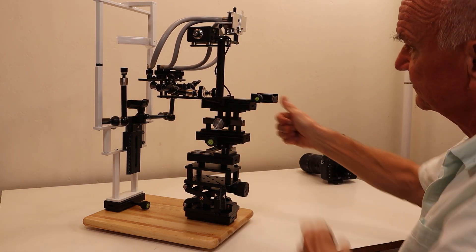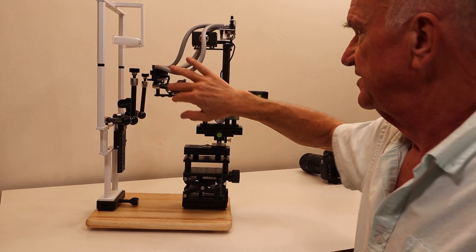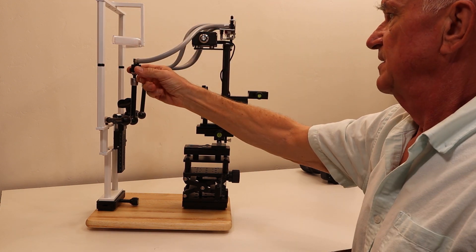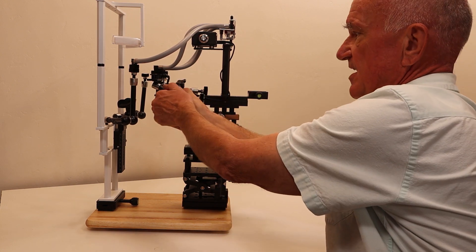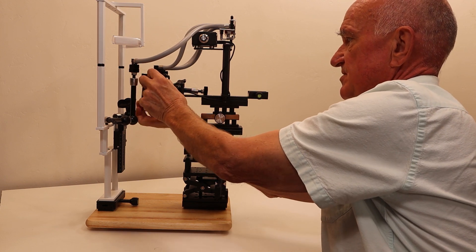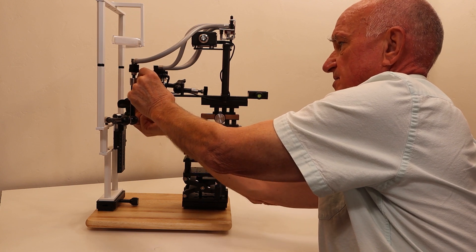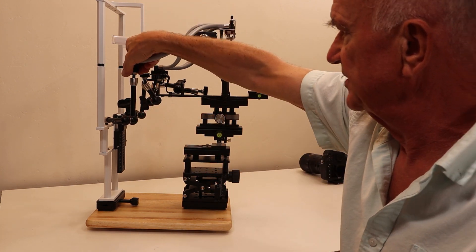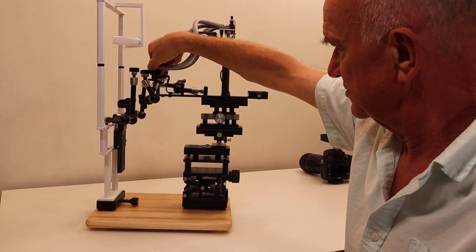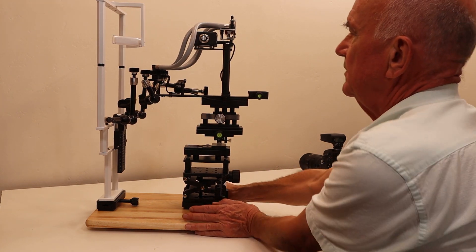This is the complete illuminator with chin rest. The newest design allows you to move the light guide to different positions. This is how the magic arm is adjusted - you can choose other angles. It takes a little time to learn how to work with these magic arms, but once you do, you can put the arm at whatever position you want on both sides.